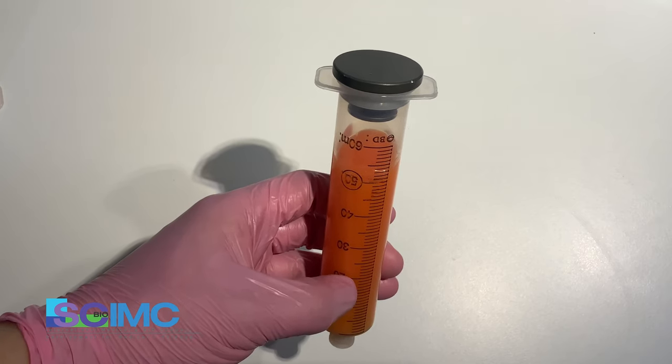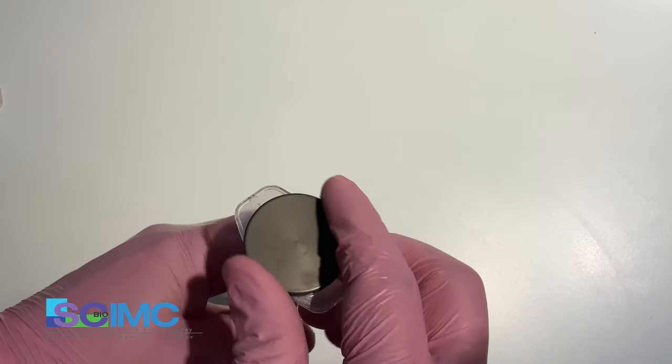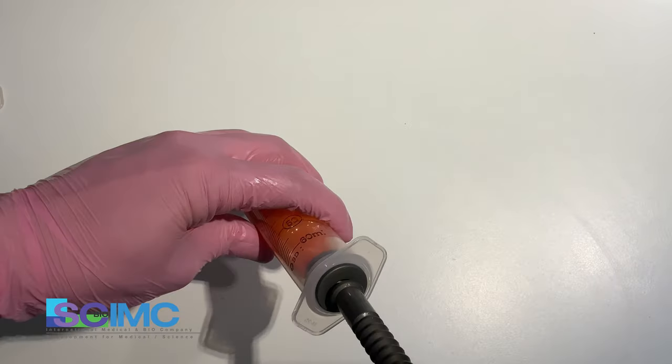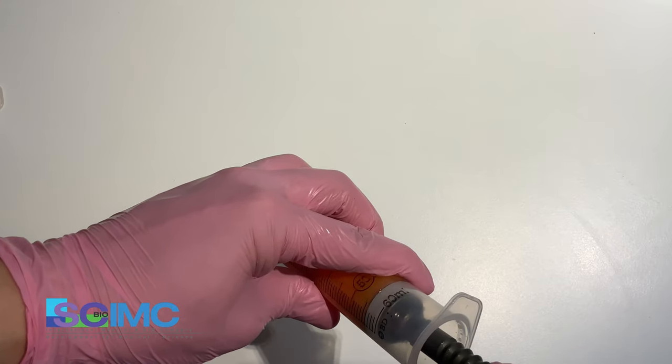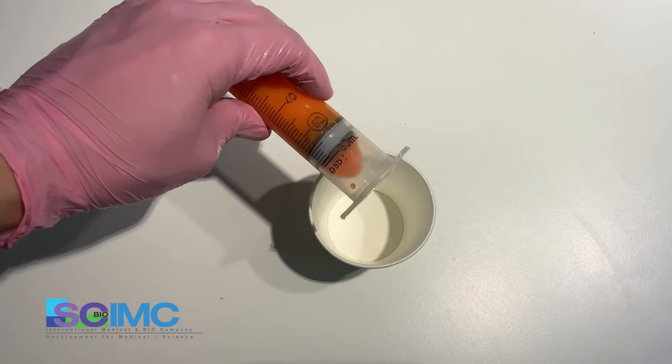After the centrifugation, the free oil in the top. Open the cap and push slowly. Remove the free oil.